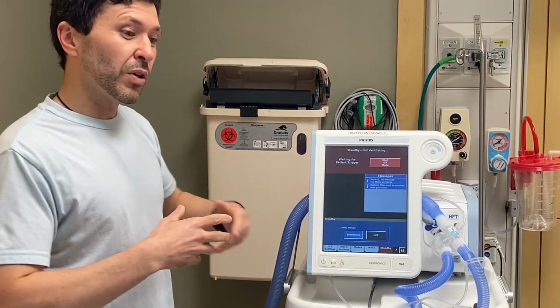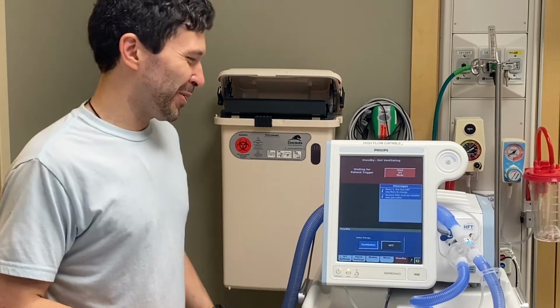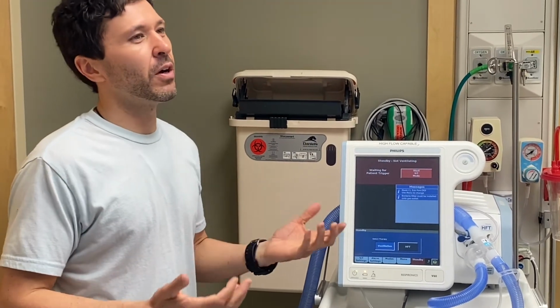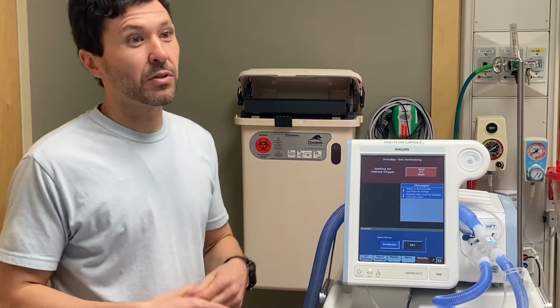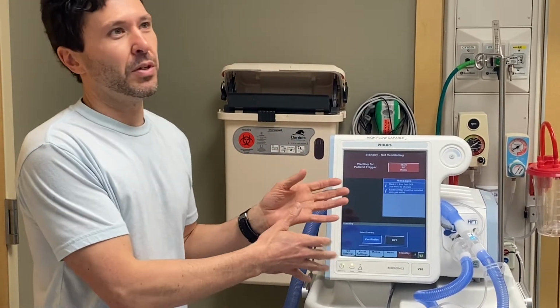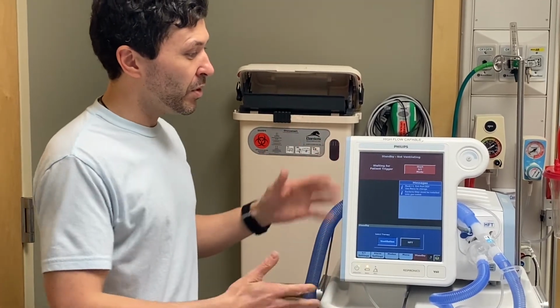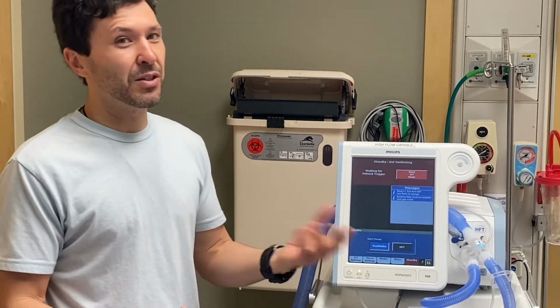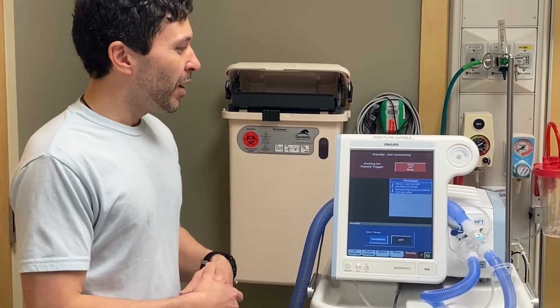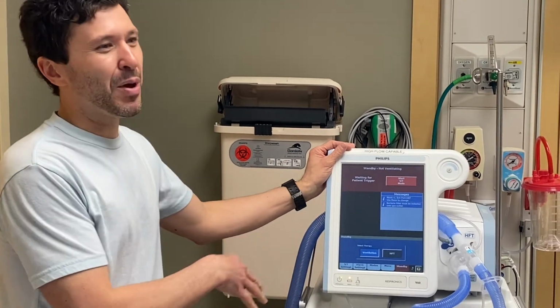So before we start, this is just a little thing I like to throw out there. Bipap is like saying Xerox. We use Xerox as in, go make me a Xerox. Well, Xerox is actually a company. Bipap is an actual mode owned by this company. This is a Bipap machine, and anything else wouldn't technically be Bipap. It'd be BPAP and CPAP. Like we have CPAP and BPAP. Bi is for bi-level. I just like to throw that out there. I hope it didn't make it any more confusing, but Bipap is a brand name.